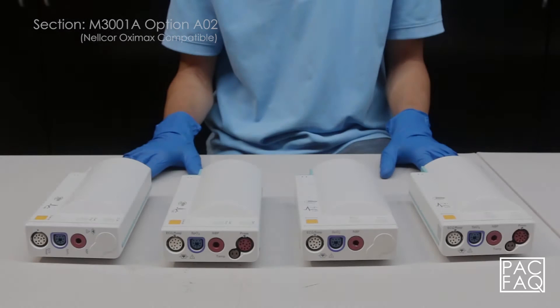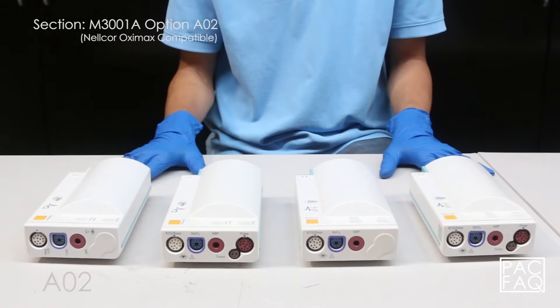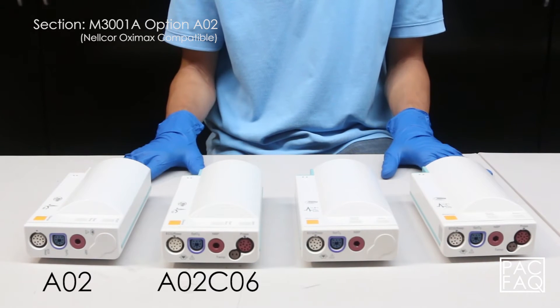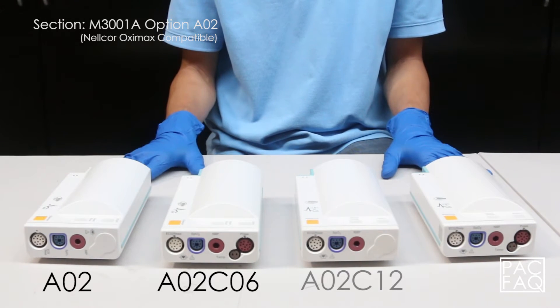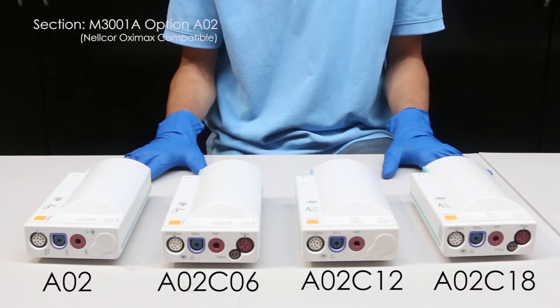In section M3001A module option A02, Nellcor OxyMax compatible, we will talk about the options and parameters that come with each unit. First we have A02 standard, A02 C06, A02 C12, and A02 C18.